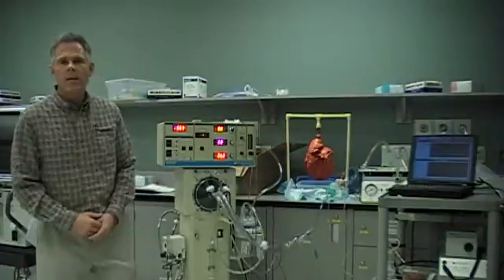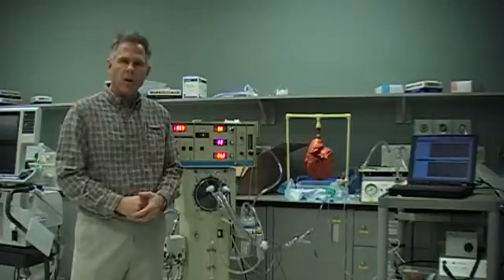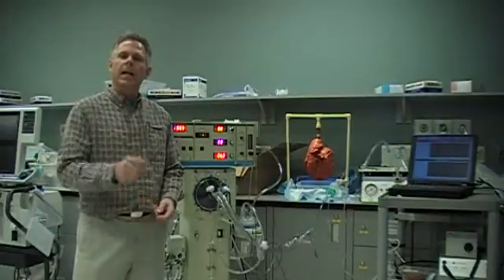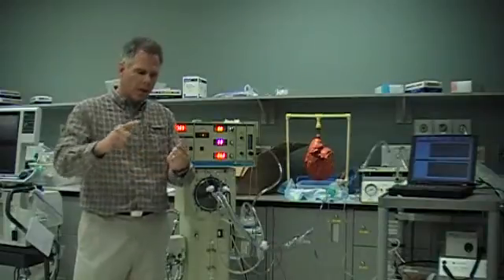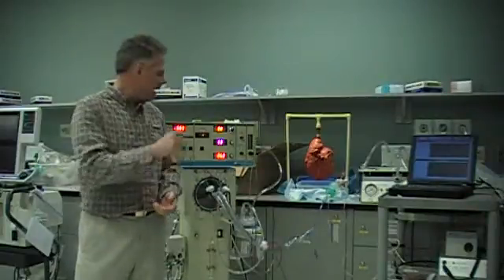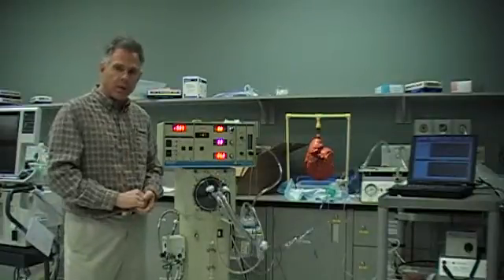Hello, my name is Alan Prost and I'm going to talk to you about the high frequency oscillator as part of the course RESP 220 here at SAFE. We've talked about volume control ventilation and pressure control ventilation as control variables for mechanical ventilation, and now we're going to look at a specific ventilator that uses time as a control variable — that's high frequency ventilation.